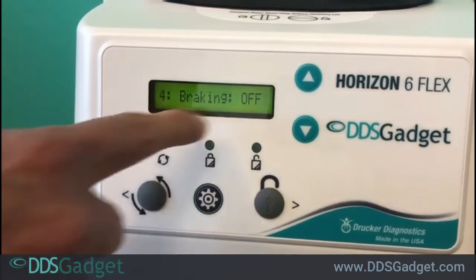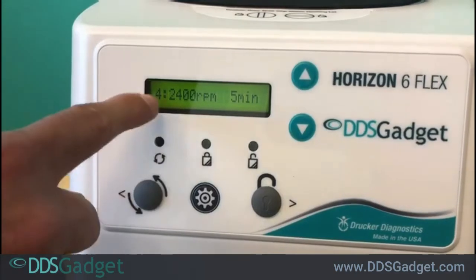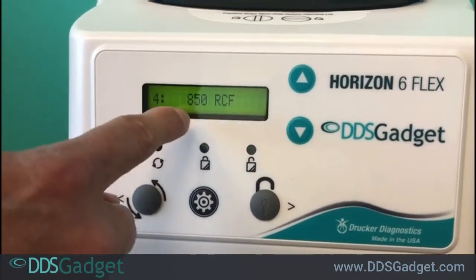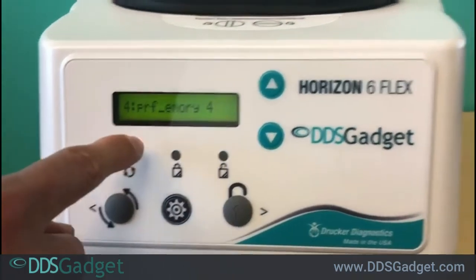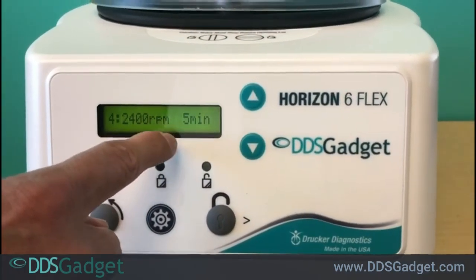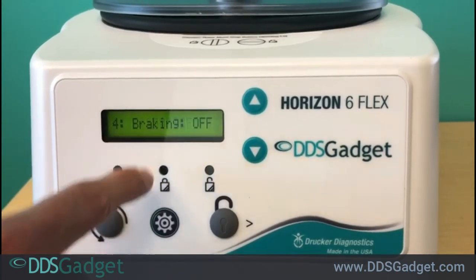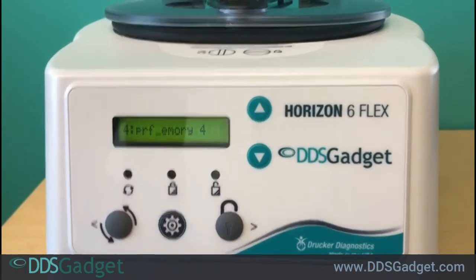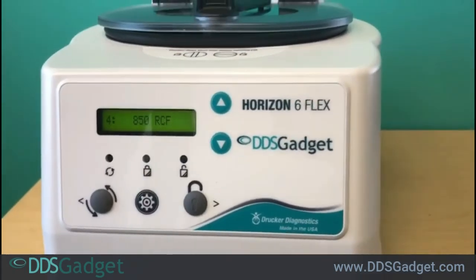You'll then see that the cycle is done — it will tell you exactly all the settings: the name PRF, 2400 RPM. Again, this is just a fake setting to show you how to use it, braking off. It also gives you the RCF, which is important especially when you want to use a custom cycle and know what RCF you need. That explains exactly the custom setting.